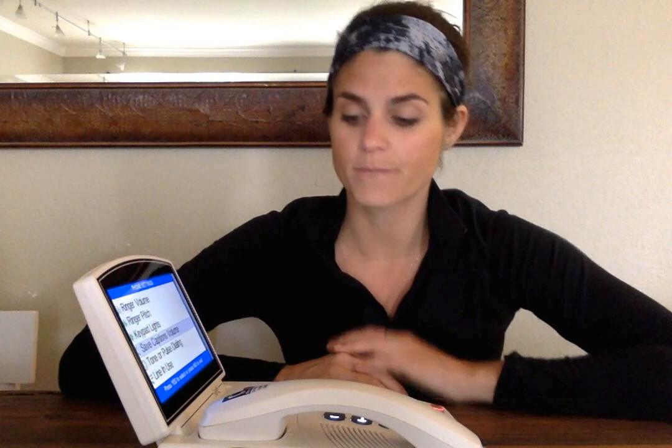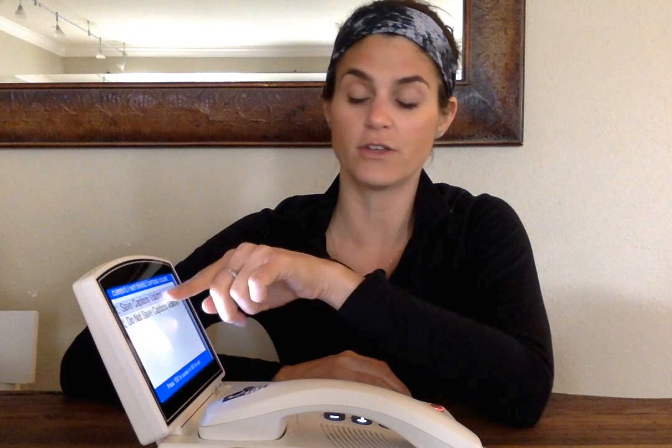This one I would highly recommend changing. So what you can do is hit yes in the Save Caption Volume. And right now it should say, do not save caption volume. Your blue line should be on that. Go ahead and hit the up button and hit yes, because you want that blue line to be saved on your caption volume.